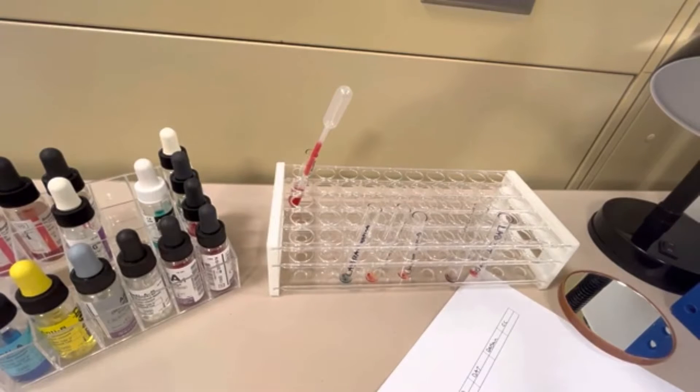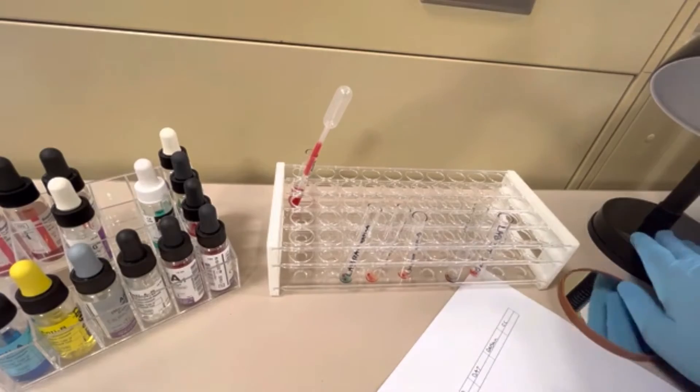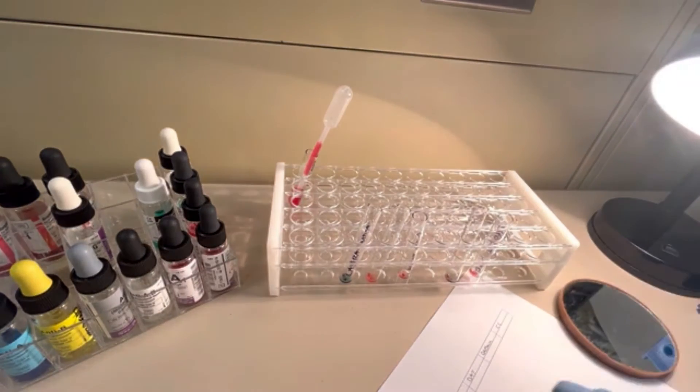Okay, I have returned. What I've done here is taken all of our tubes and spun them for 15 seconds in the centrifuge. And now I'm going to go ahead and start reading them. Let me turn my light here. I've got my result sheet.